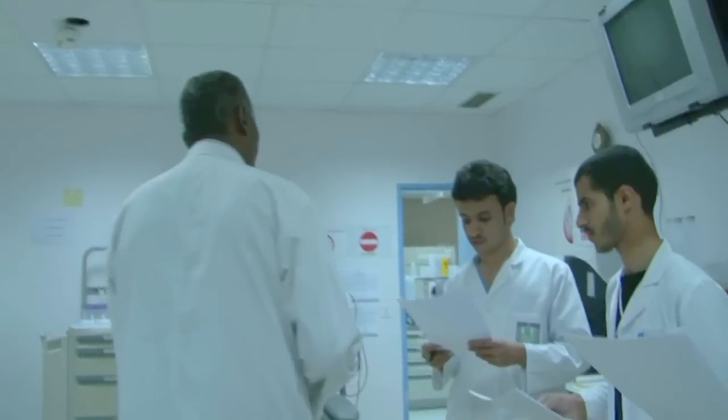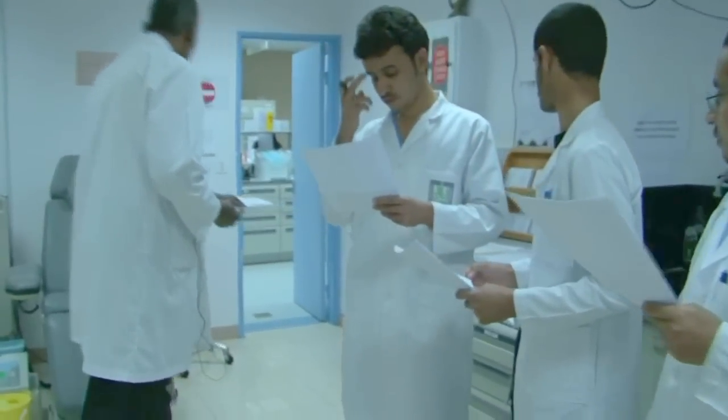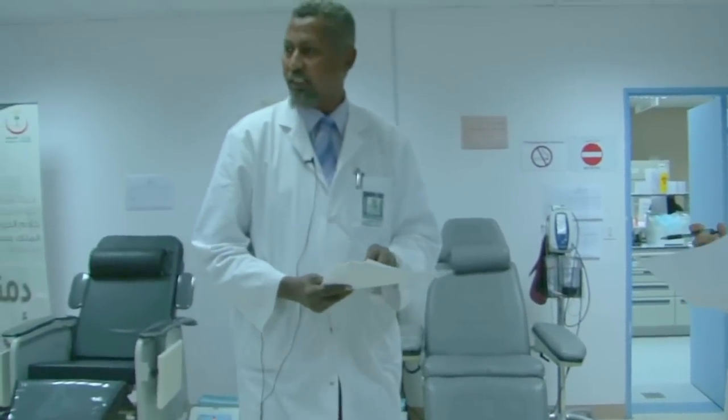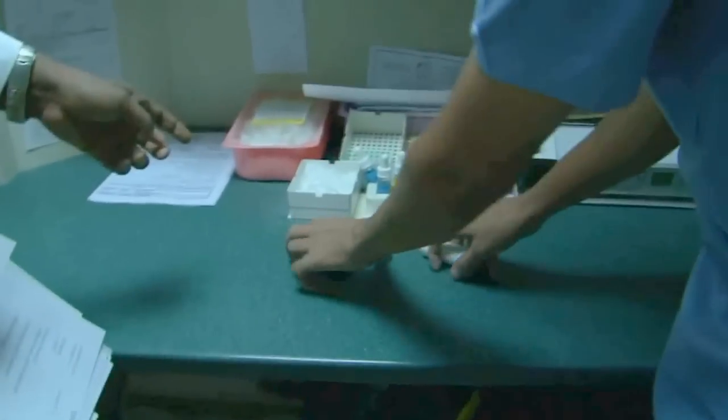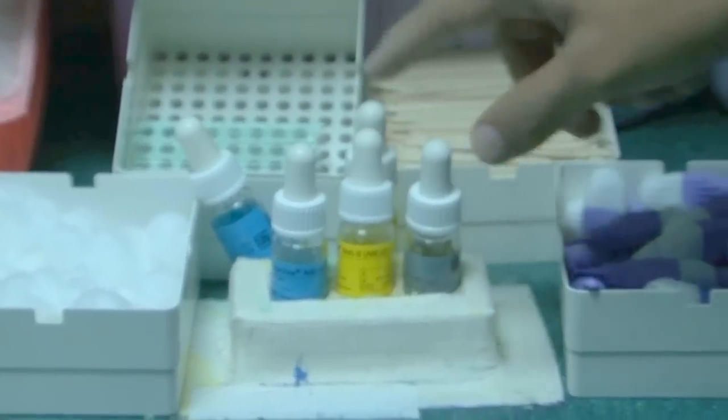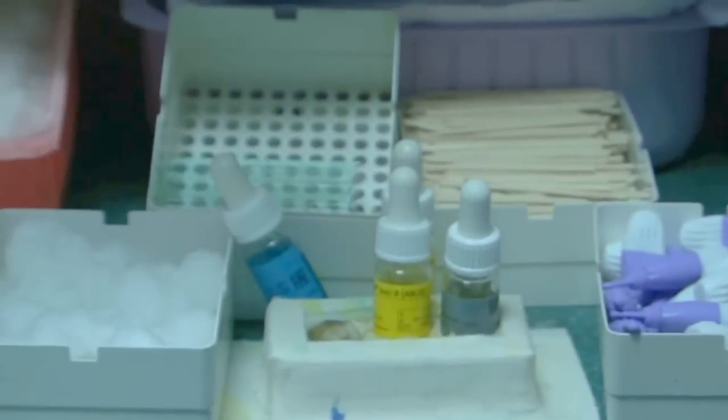And I think we have some small tests for blood grouping, and this can be done here with kits, special kits for blood grouping. And these kits actually contain 3 types of vials outside. So we can see it outside, blood grouping, yes. So we have this actual 3 types of bottle or vial. What is this one? What is the blue color?